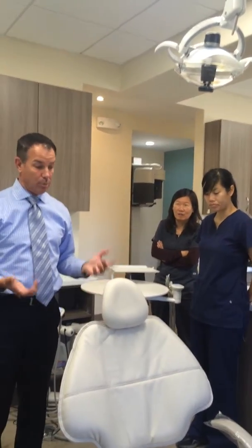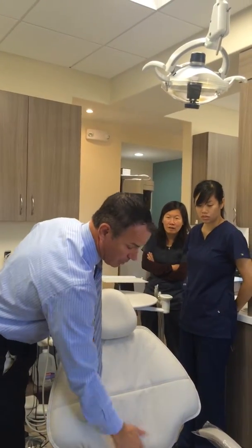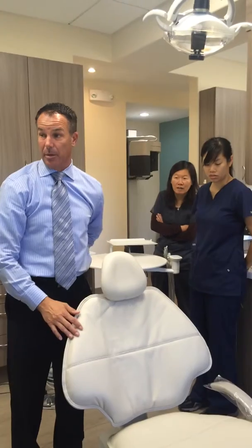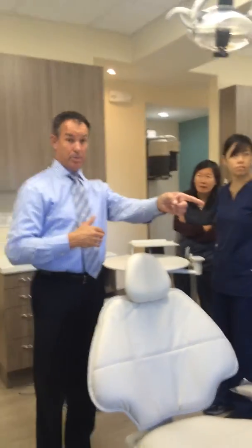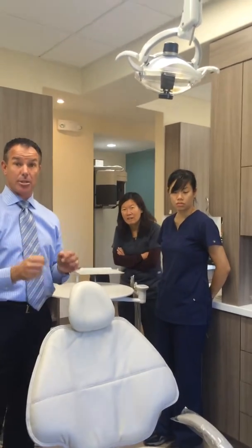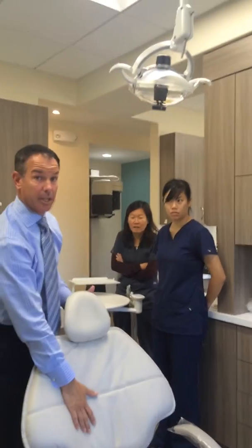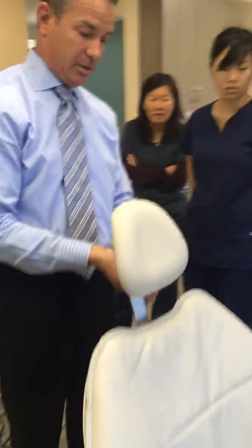Okay. So when we come in to seat them, we want to put them in here. I want to slide them all the way back so that the patient's getting lumbar support on the very back. I can put someone as tall as me in here. I can put someone as tall as your husband in here. And their feet will never hang off the end, as long as we slide them all the way to the back. When we do that, we want to pull up the headrest here.